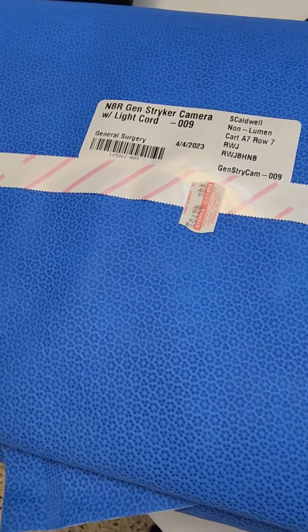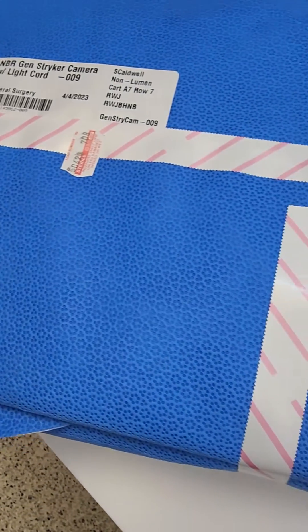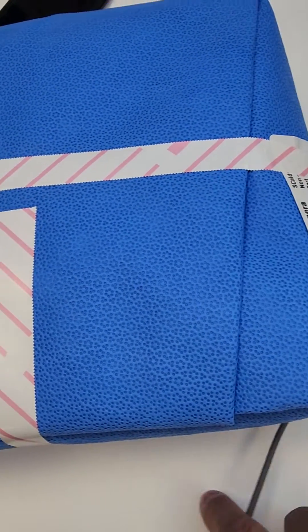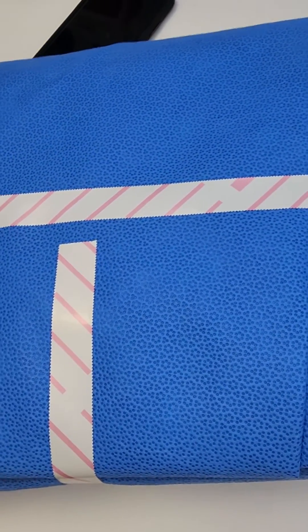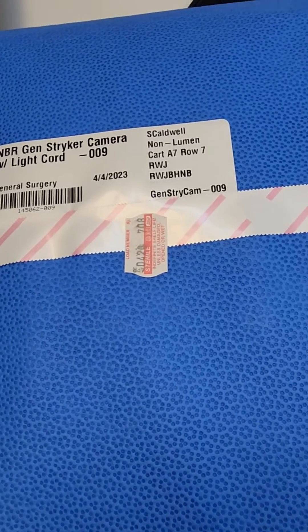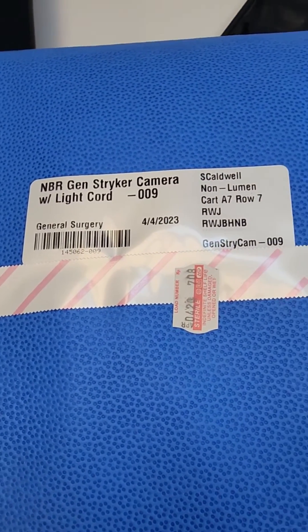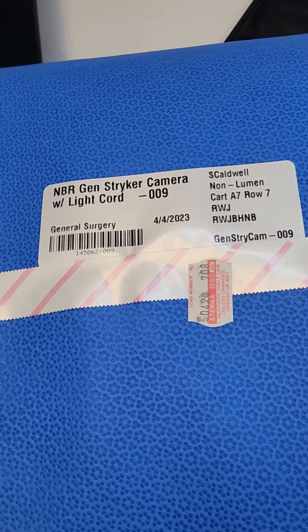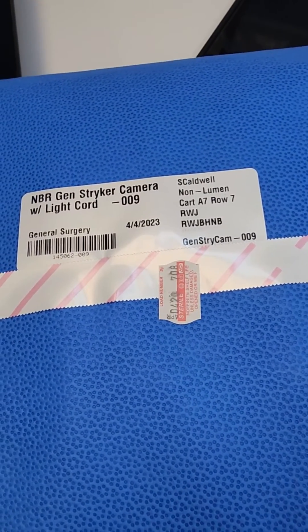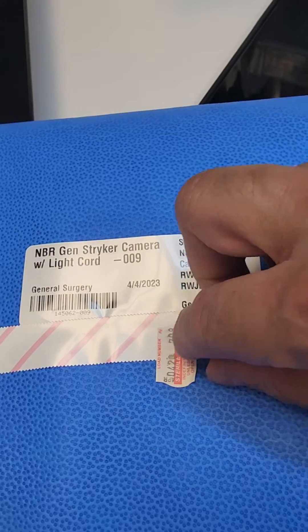What's going on guys — you know what time it is, it's time to stir that pot. So here we have a low temperature item that was sterilized, and I often teach technicians: do not cross tape and do not place anything over the Type 1 indicator tape. For some reason they believe that I lie, or they see something done somewhere else and think it's okay because they get away with it for so long — but this is why you don't cross tape.